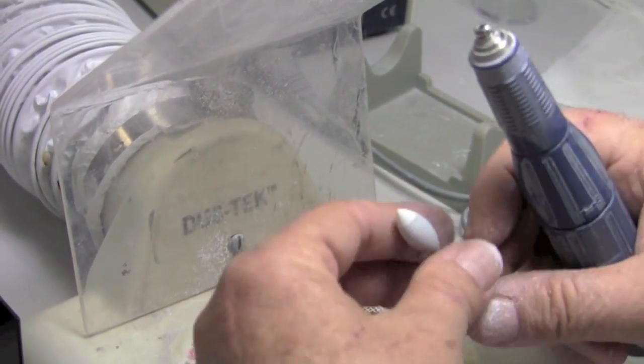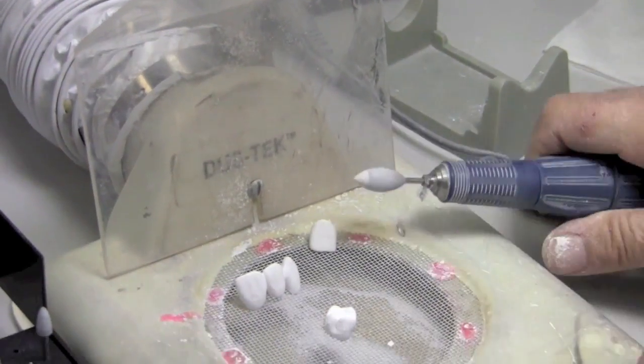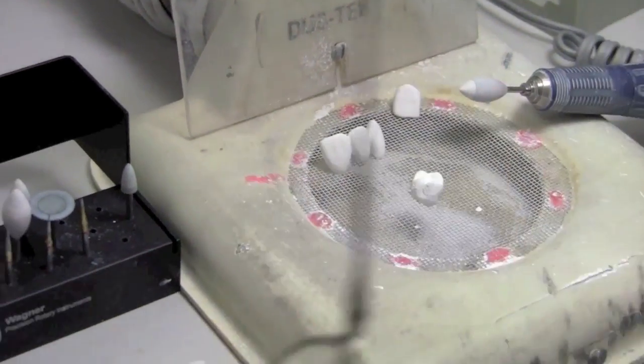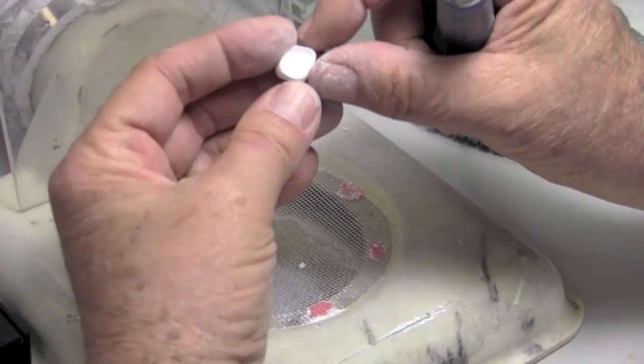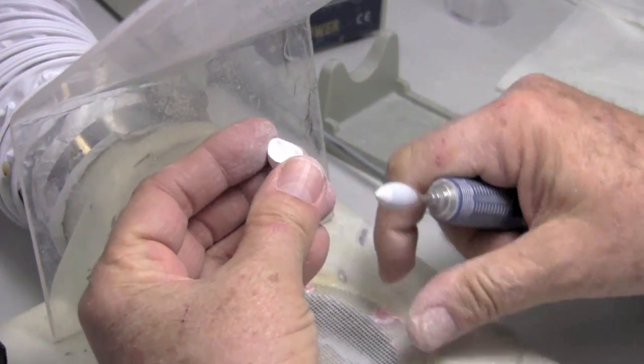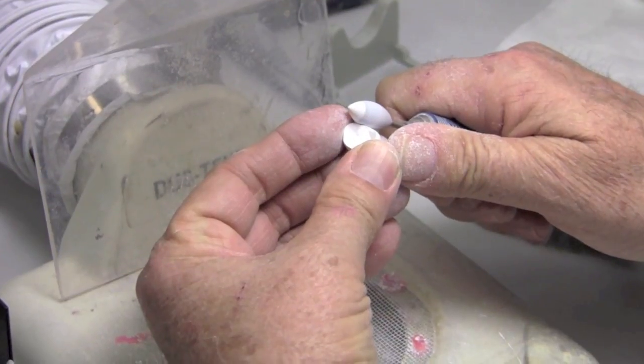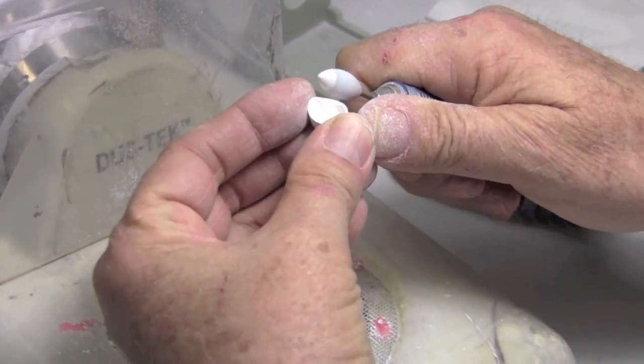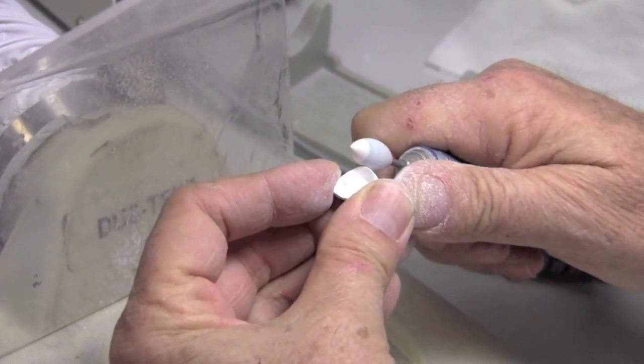I kind of oscillate back and forth doing margins. Although these are kind of nice cause they're a little quicker. Depends on what makes you comfortable. When you're doing things, but I'll start with this one for the margins. And of course you want to use loops. So I'm going to switch to my loops. So we're going to start with the margins and just thinning those down.